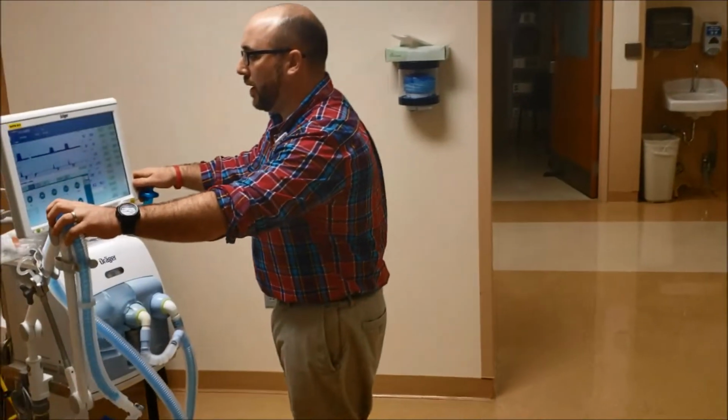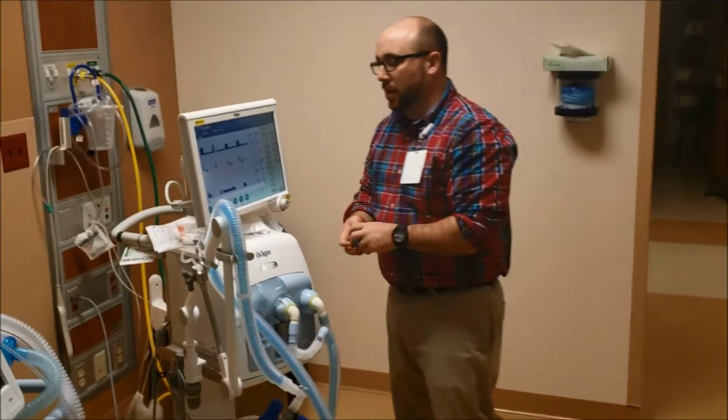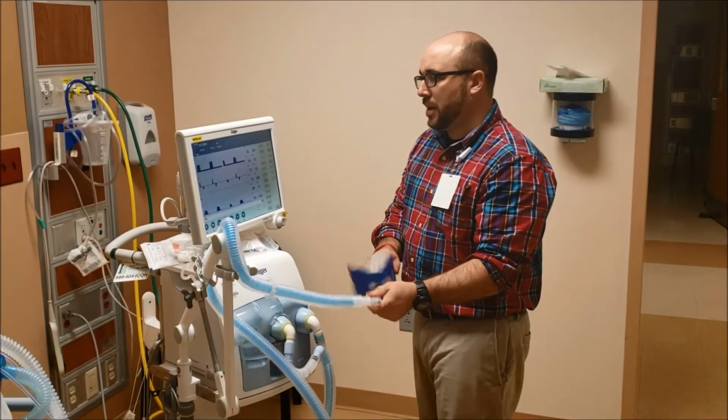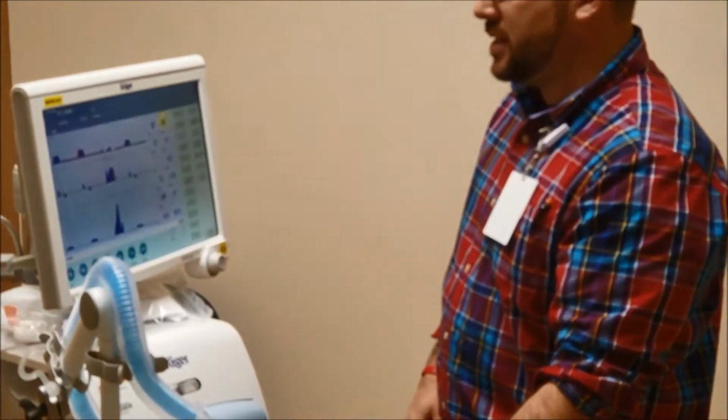Okay, so different things that you need to know. Okay, so common alarms that you're going to see. So this is probably the number one alarm, one of the main alarms you might see.